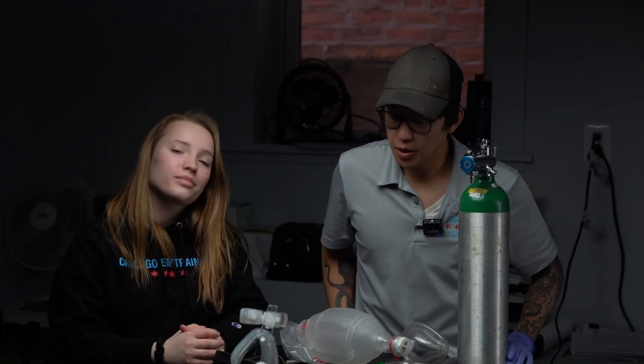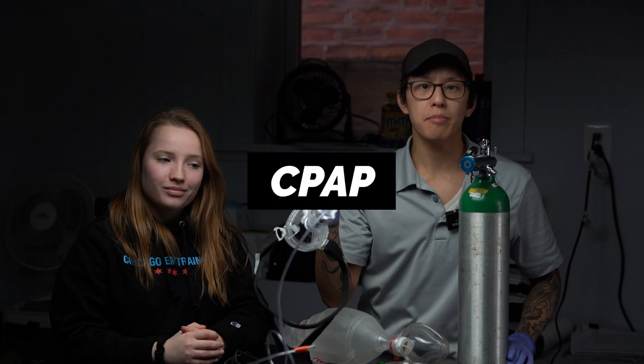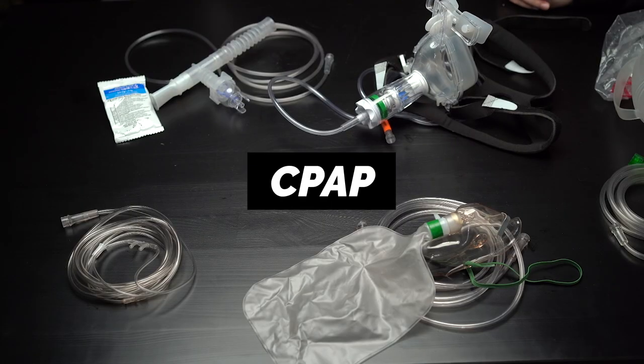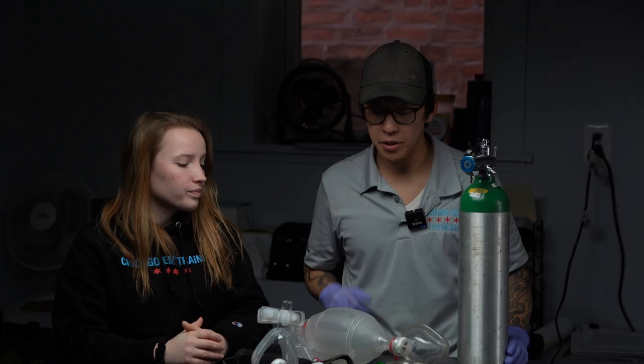Hello everyone! In this video we're going to talk about our friend CPAP. On the table we have a variety of methods to deliver oxygen, but this video will be focused on CPAP.